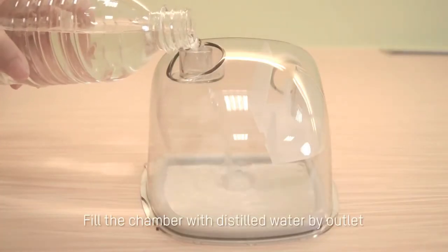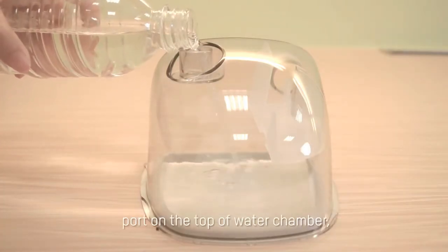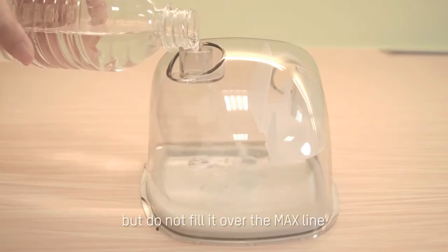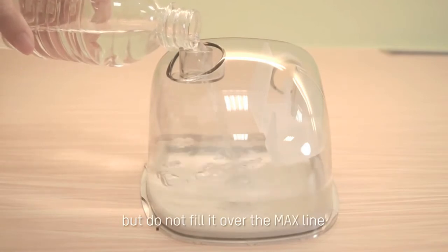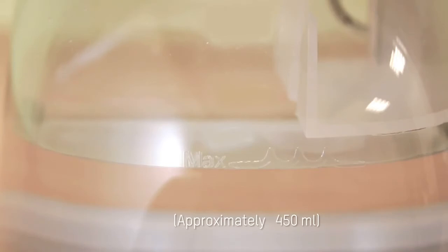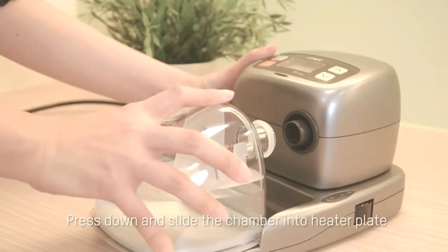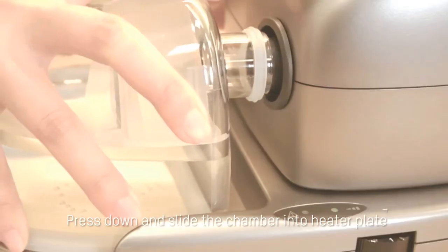Fill the chamber with distilled water by outlet port on the top of the water chamber, but do not fill it over the max line. Press down and slide the chamber into the heater plate.